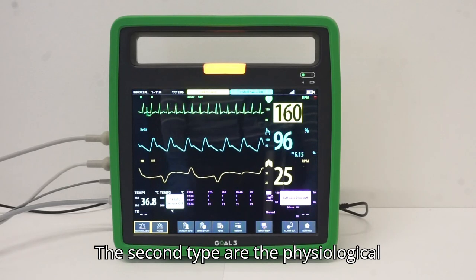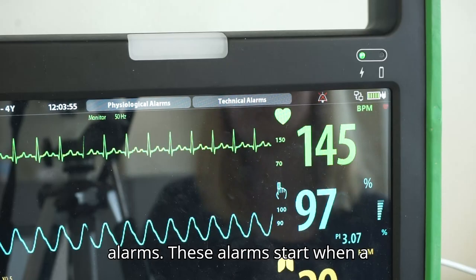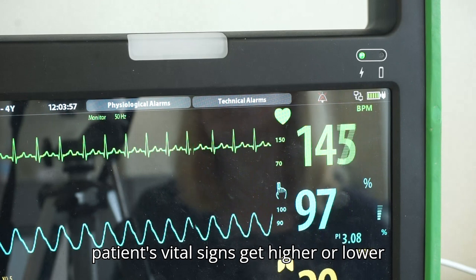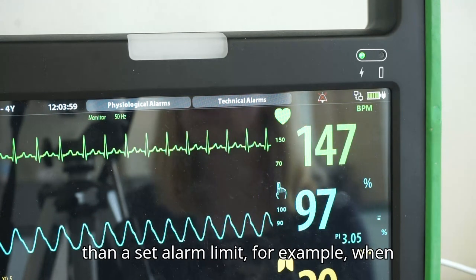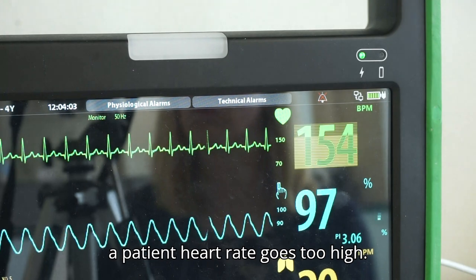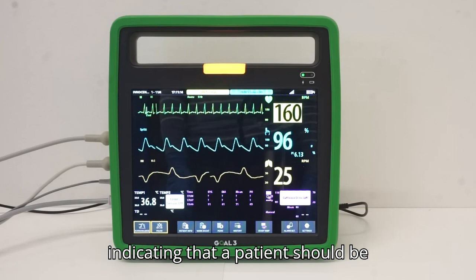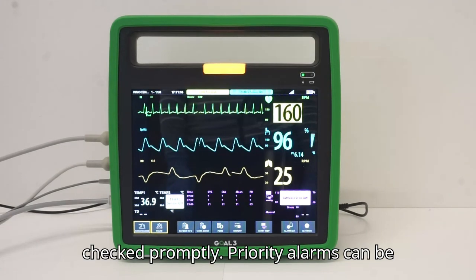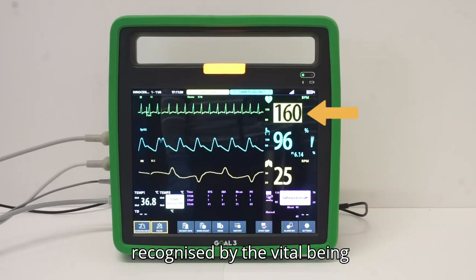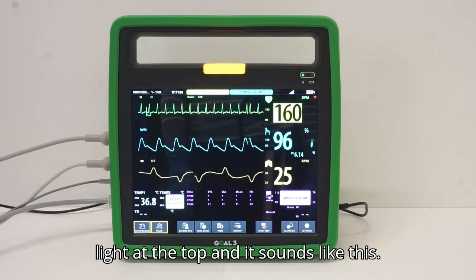The second type are the physiological alarms. These alarms start when a patient's vital signs get higher or lower than a set alarm limit. For example, when a patient's heart rate goes too high. These alarms start as priority alarms, indicating that a patient should be checked promptly. Priority alarms can be recognized by the vital being highlighted in yellow, a blinking yellow light at the top, and it sounds like this.